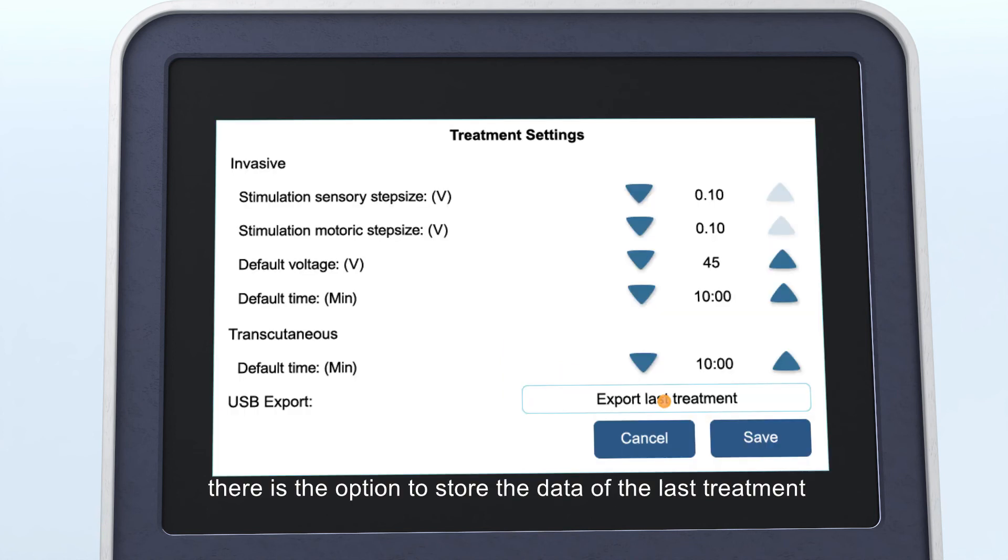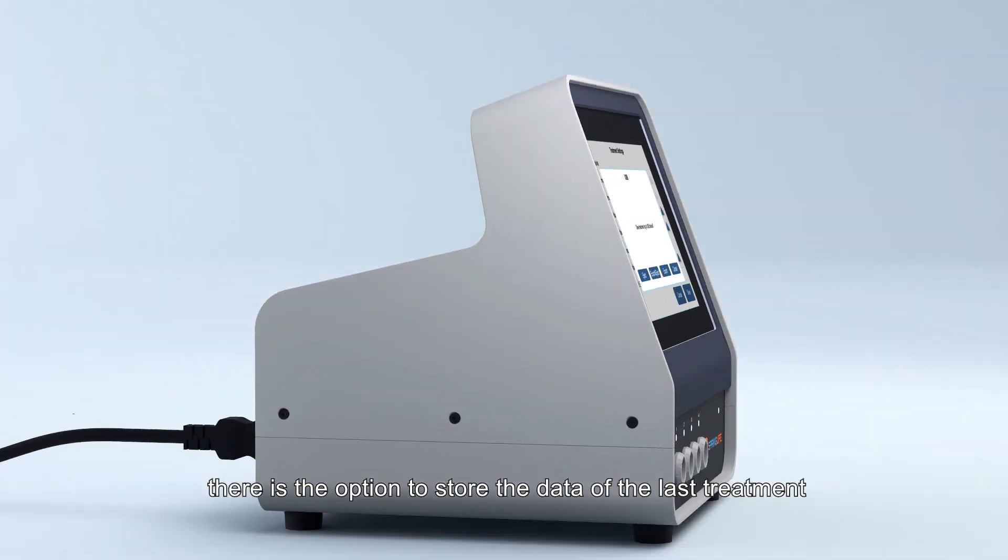After any treatment, there is the option to store the data of the last treatment on a USB stick.